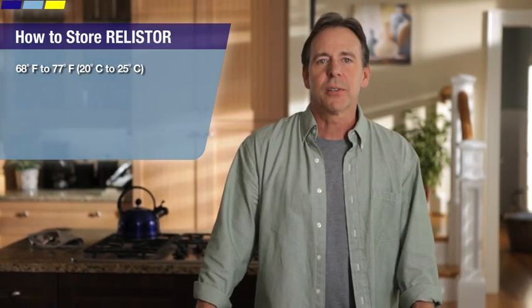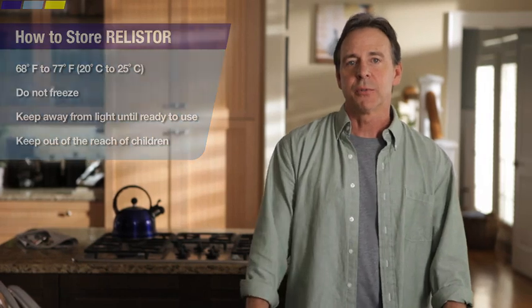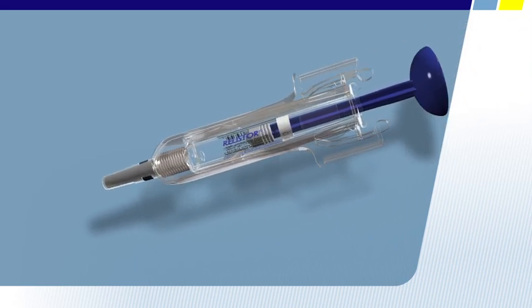You should store Relistor pre-filled syringes at 68 to 77 degrees Fahrenheit or 20 to 25 degrees Celsius. Do not freeze Relistor, and keep it away from light until you're ready to use it. And of course, it's important to keep Relistor and all medicines, needles, and syringes out of the reach of children. So let's take a look at the Relistor pre-filled syringe.